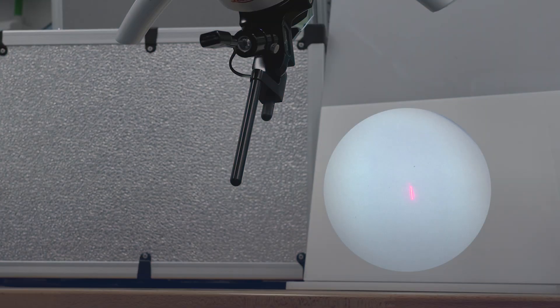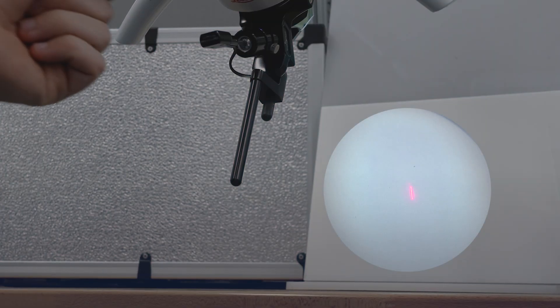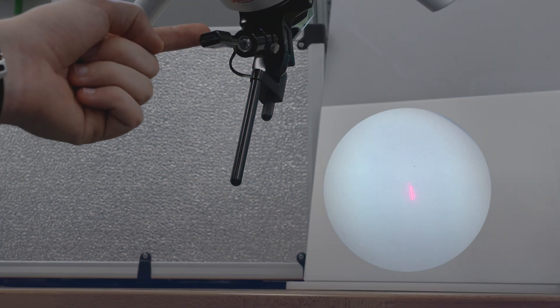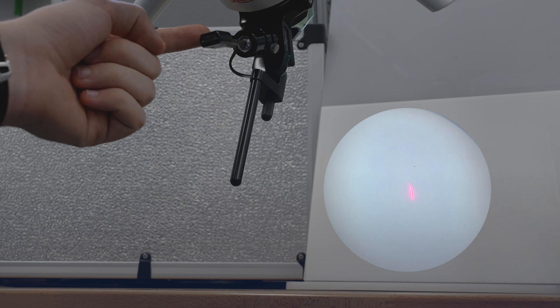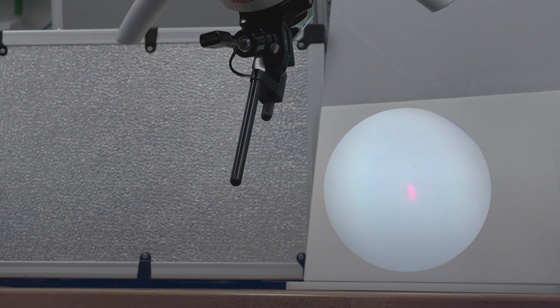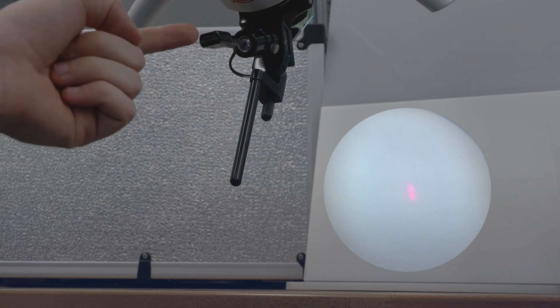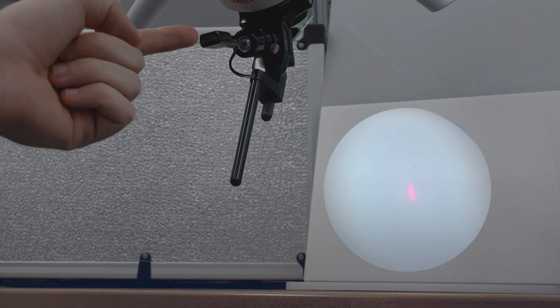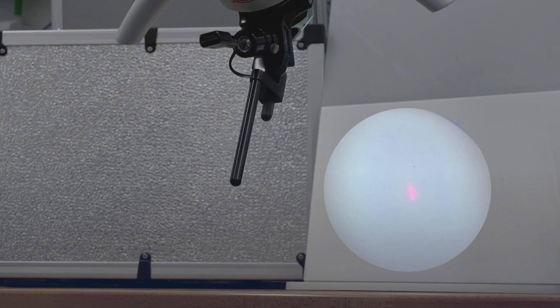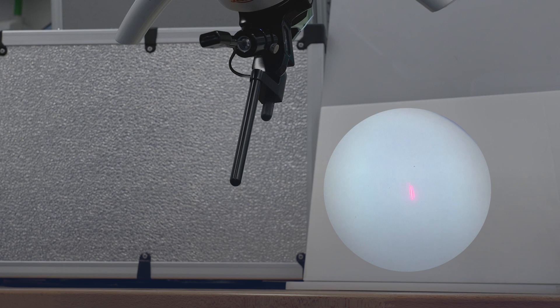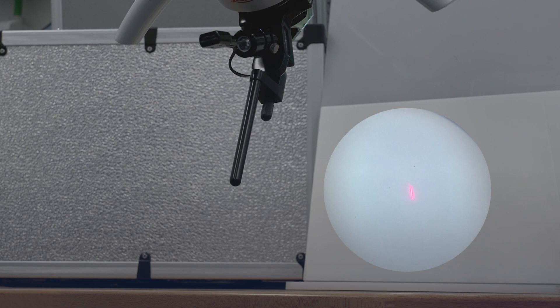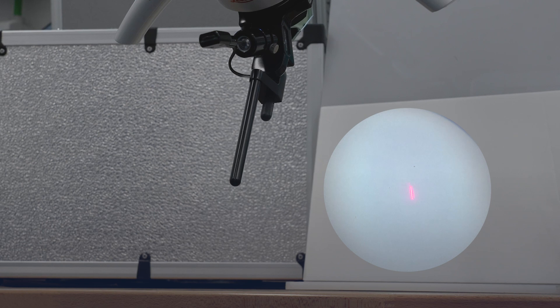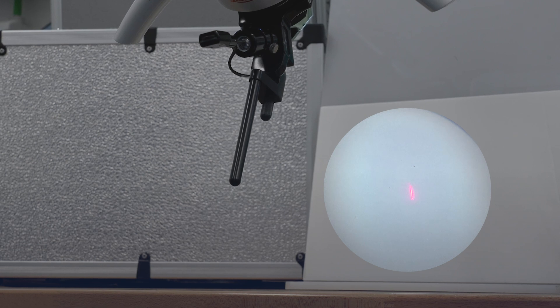We analyze a specific component of the Micro Manipulator called Joystick. The Joystick features a remote control, a small microswitch that allows physicians to control all the main scanning functions without ever taking their eyes off the operating microscope or exoscope.